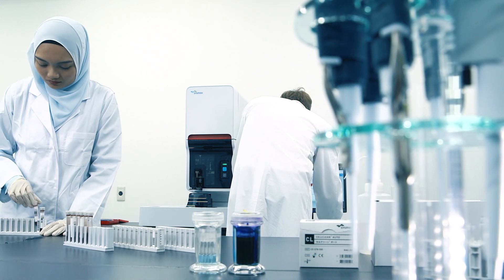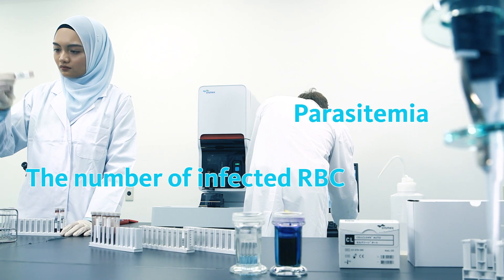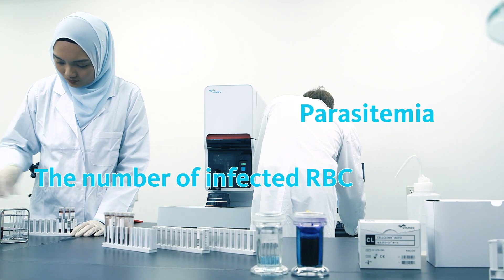Using flow cytometry, it can quantify the number of malaria-infected RBC, measure parasitemia, and provide information about the malaria species.